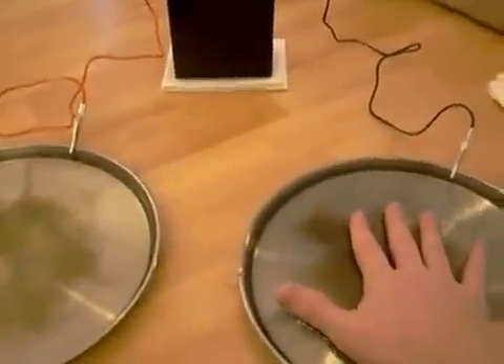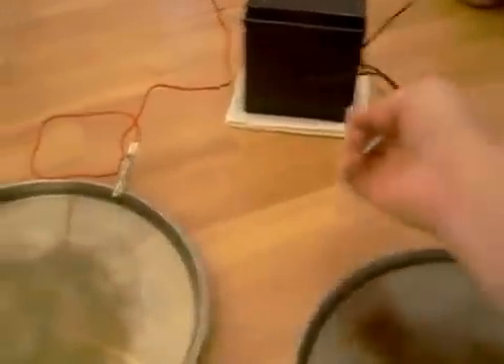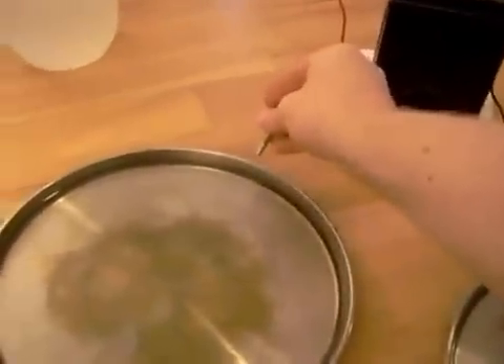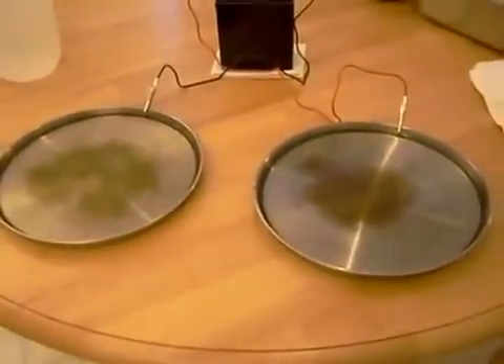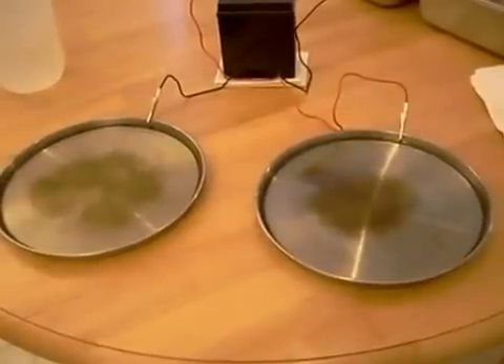Keep your hands in for about ten minutes. After ten minutes, take your hands out and dry them off. Do not let these terminals touch one another. Simply reverse the polarity and put your hands in for another ten minutes. If you do this about three to four times weekly — once every other day for about two weeks — you will notice that your hands have stopped sweating almost completely.